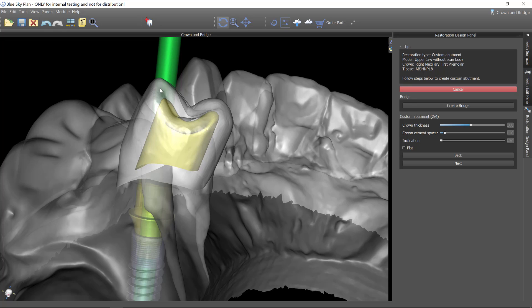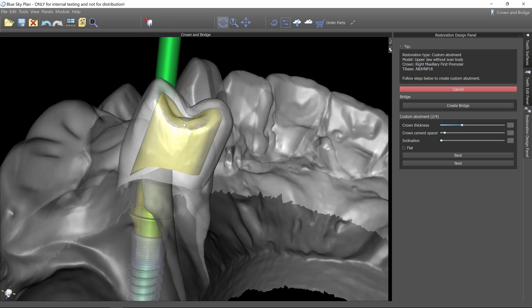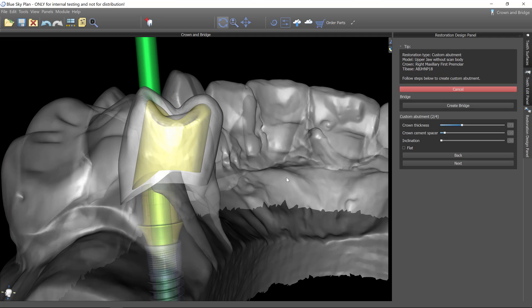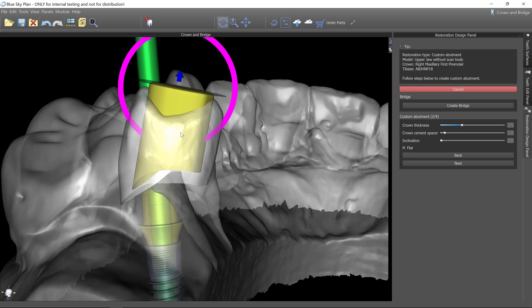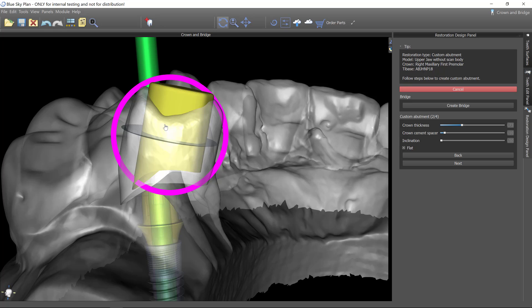Right now it does a uniform amount of reduction. I want to redo this to where it will actually have maybe two millimeters of occlusal clearance, but axially have a different amount of clearance. But right now, let's say that we want to maintain a crown thickness of 0.75, which would be what I'd be pretty comfortable with on the axial with the zirconia crown. Now it again brings this to where I've only got 0.75 on the occlusal. So I have a few options right now. I can go back and manually shape this down in the next step, or I can flat top the top of this abutment and bring the flat top down to where I think the ideal central groove would be. So let's just suppose that that was right here.